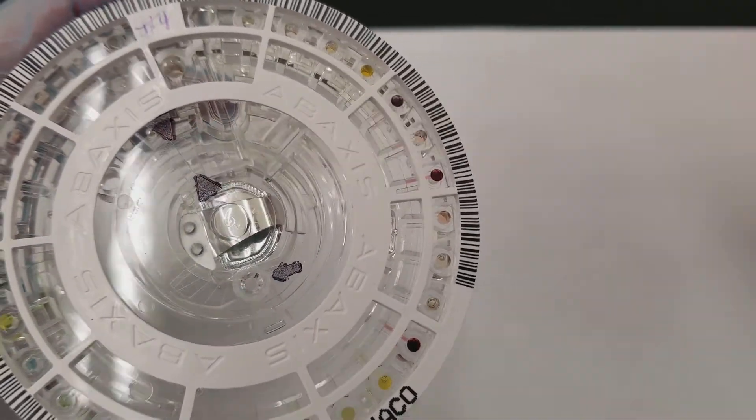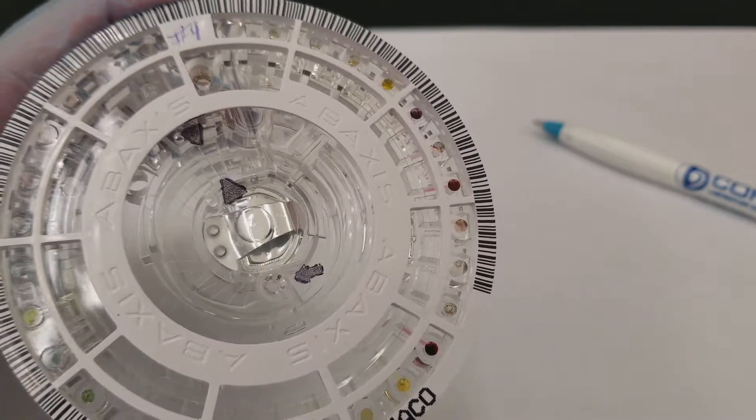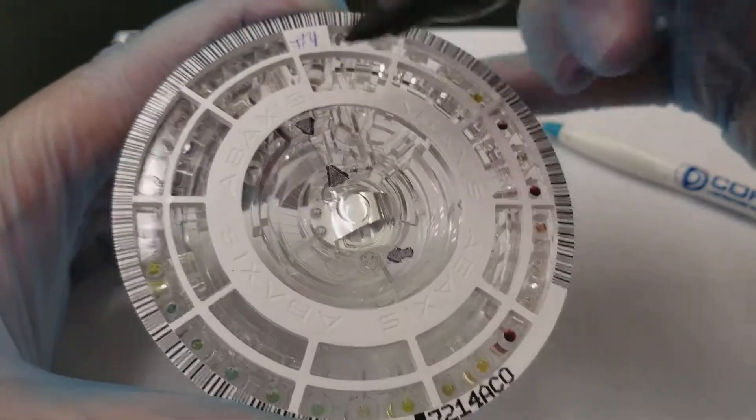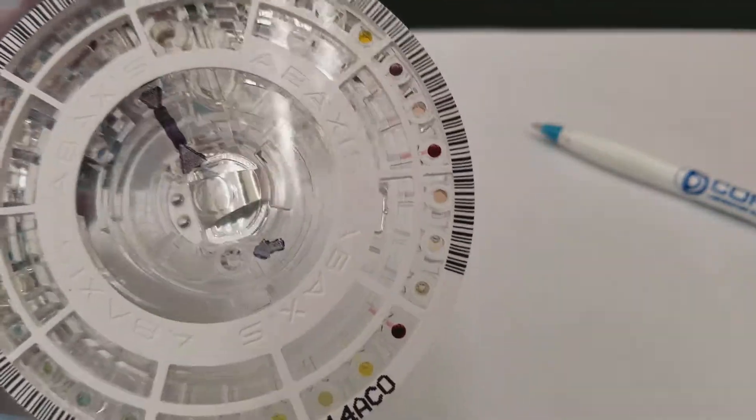So notice between those two arrows there's a line and that looks like etching as well. And now I can take my Sharpie marker and show you the actual line. So there's the line in between.